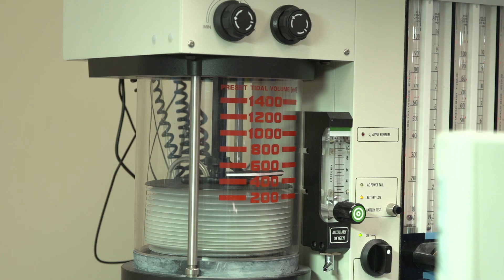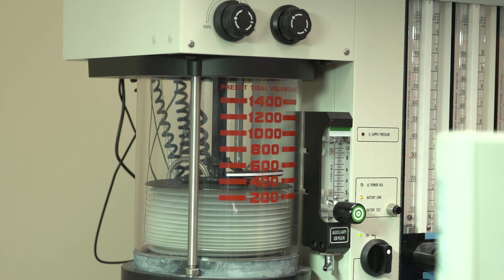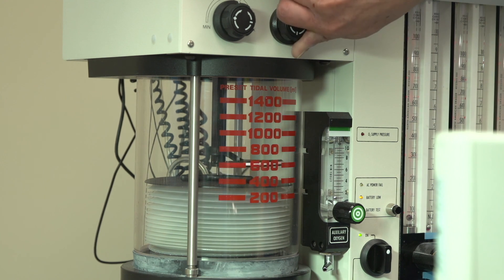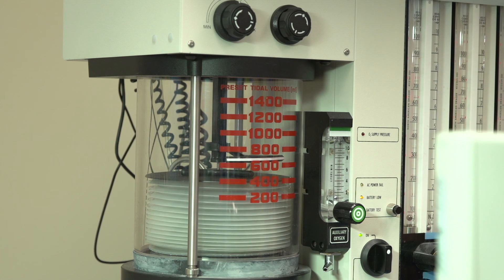AniClear will work with all anesthesia machines and monitors as long as tidal volumes of 500 milliliters or greater can be delivered and the emergence minute ventilation is double that of the maintenance.